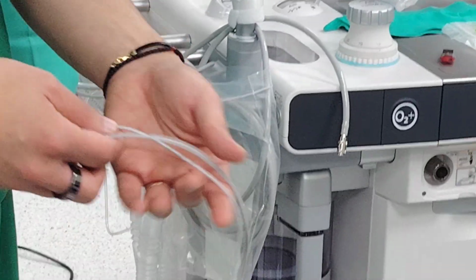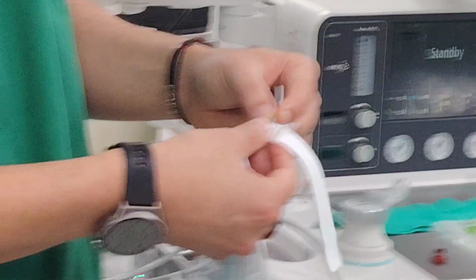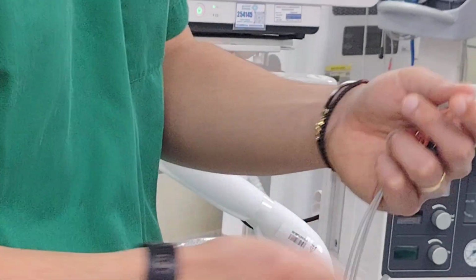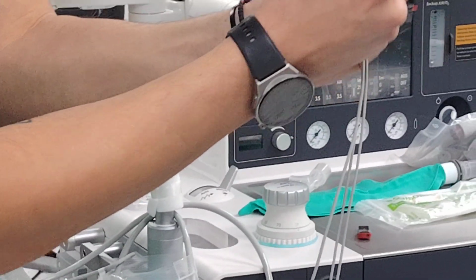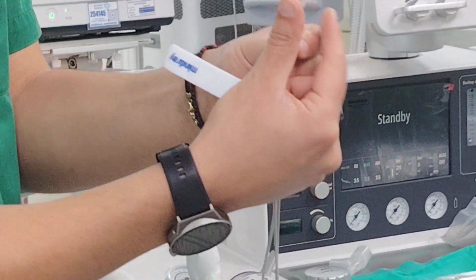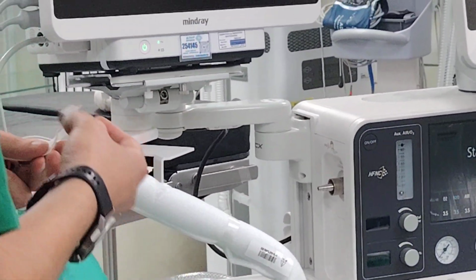Okay, that's number one. Number two is this thing right here. This is a disposable sensor. Maybe you will not use the disposable, it's not necessarily required. This is the sensor, which is most important. Let's say today you don't have this. What do you do? Normal plaster, very good. How do you put it? You see here, there's a flat surface, so it's like this, not like that. Any plaster you put it on, you're good to go. Now, a few things you need to take note of.